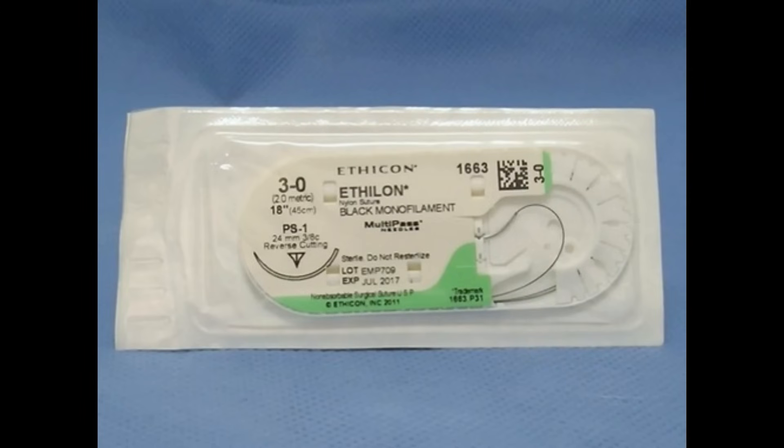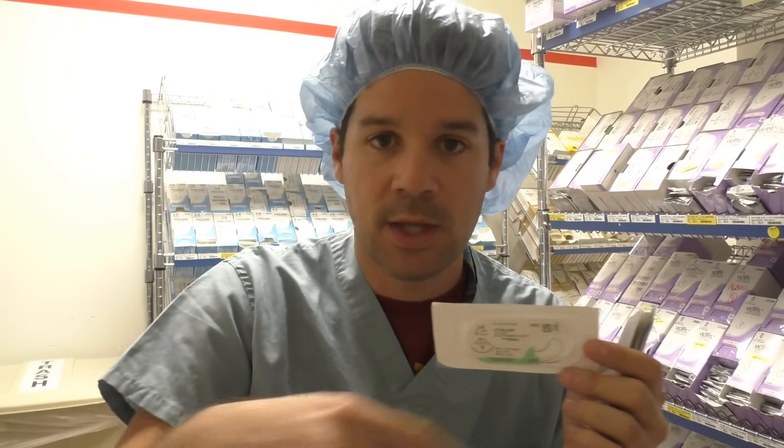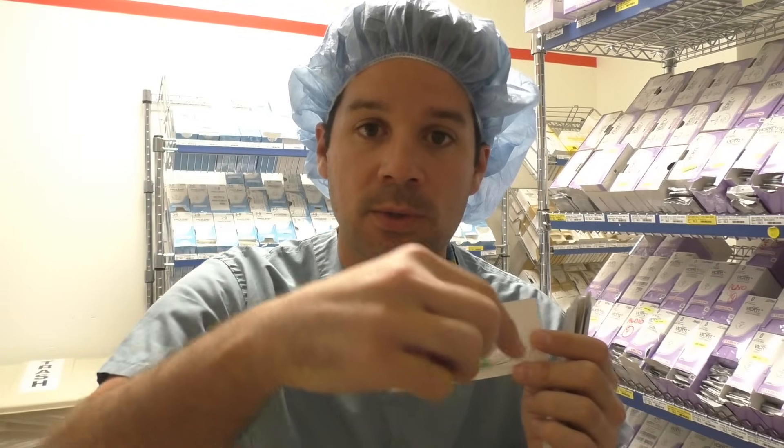What's the big difference between silk and nylon? Silk is multifilament; nylon is monofilament. Nylon is a little stretchy — not super stretchy like nylon pants, but it does have some stretch to it, which is interesting when you're tying with it. You'll see this used across all specialties. A lot of times people use it for skin closures when they don't want a full primary closure but still want the incision to drain a little — they'll use interrupted stitches. Interrupted stitches are one single stitch, not a running stitch, which leaves areas of the incision somewhat open so it can still drain, especially if there's an infection underneath.